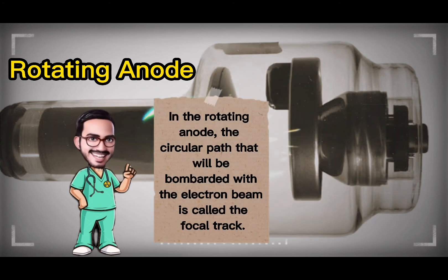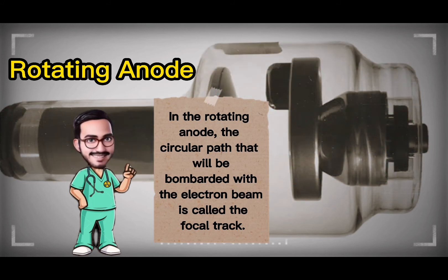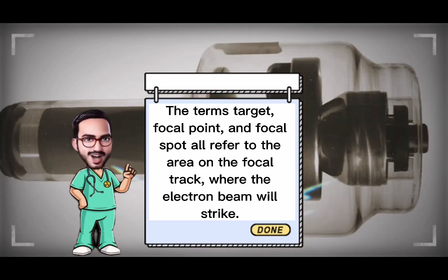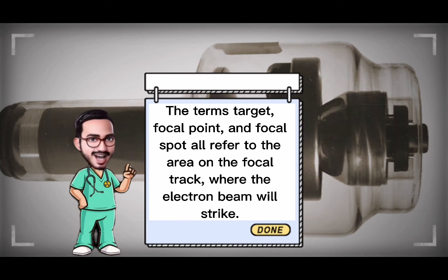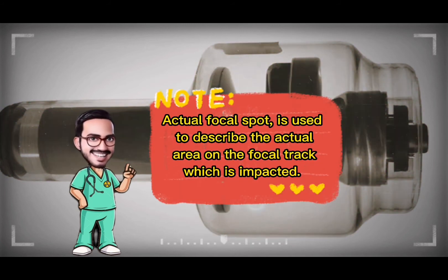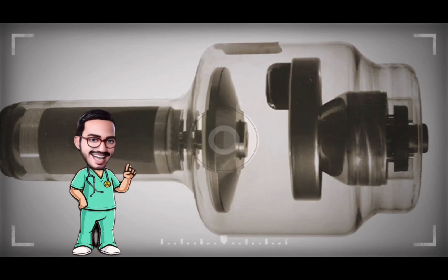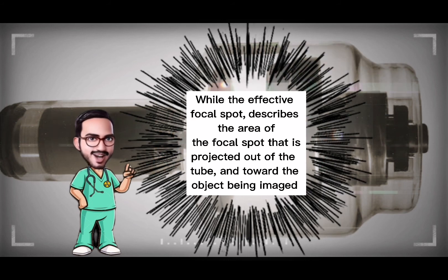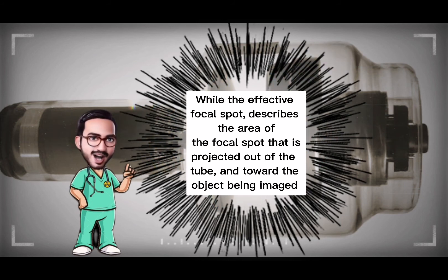In the rotating anode, the circular path bombarded with the electron beam is called the focal track. The terms target, focal point, and focal spot all refer to the area on the focal track where the electron beam strikes. The actual focal spot describes the actual area on the focal track which is impacted, while the effective focal spot describes the area of the focal spot projected out of the tube toward the object being imaged.